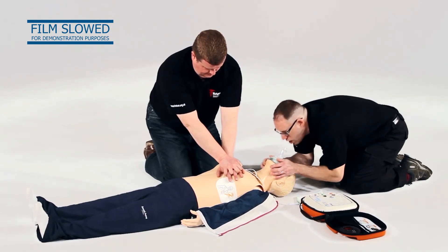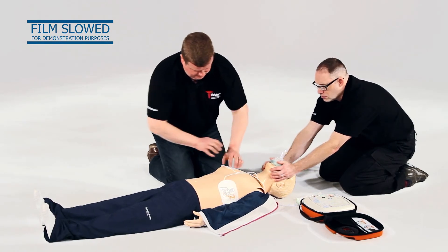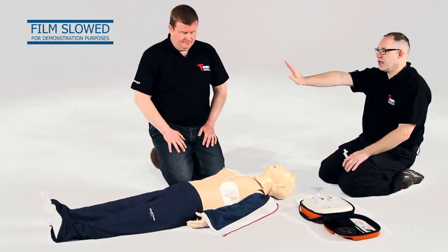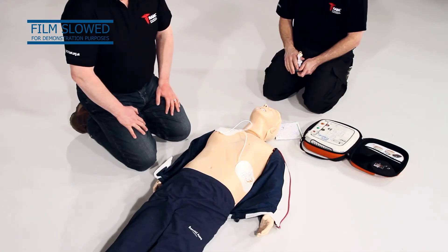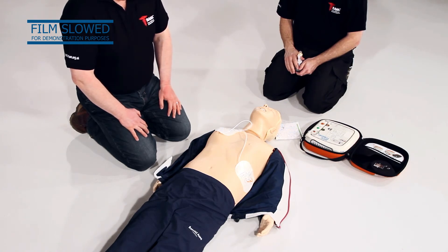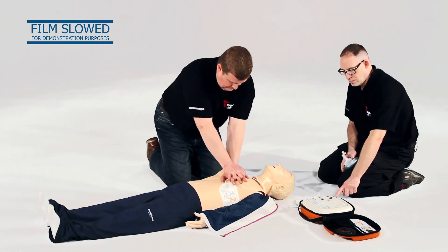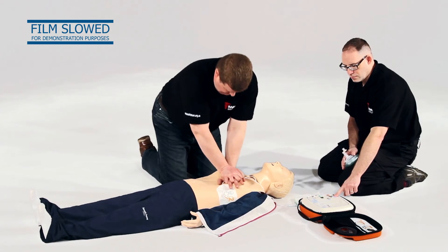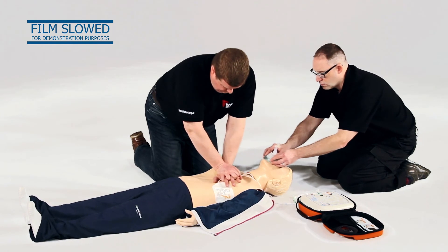Do not touch the patient while the AED is again analyzing the heart rhythm. When prompted by the AED, stop CPR and ensure everyone is clear — call 'Stand clear.' If the AED prompts 'No shock advised' and the casualty is showing no signs of life, immediately recommence CPR for a further 2 minutes, after which the AED will re-analyse the heart rhythm.